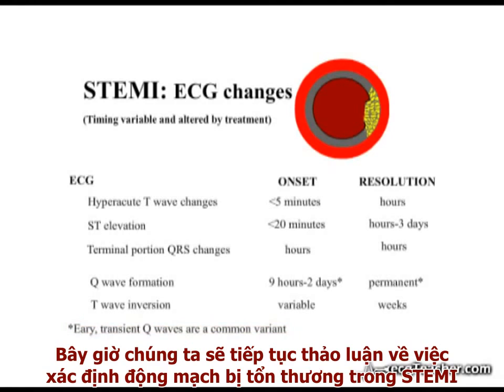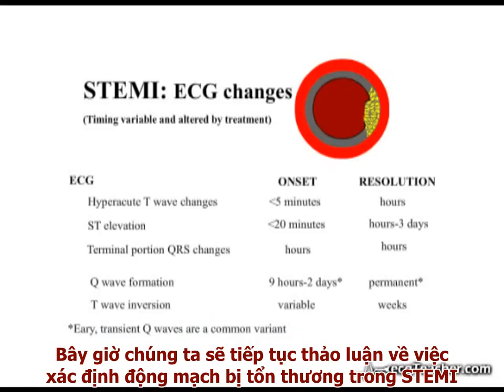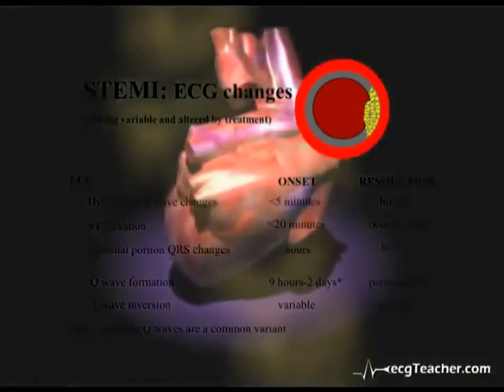We will now go on to discuss the identification of the culprit vessel in ST elevation MI.